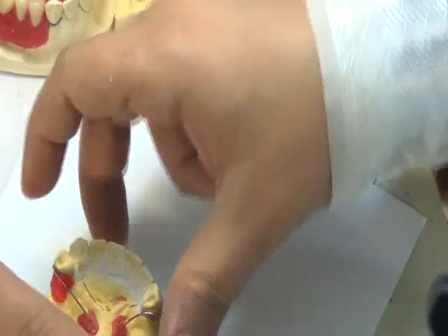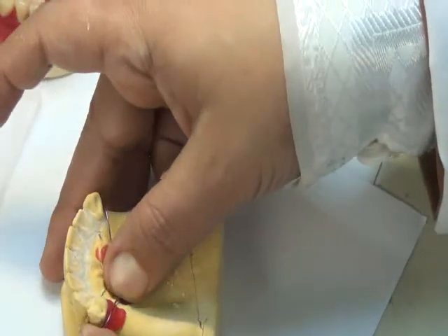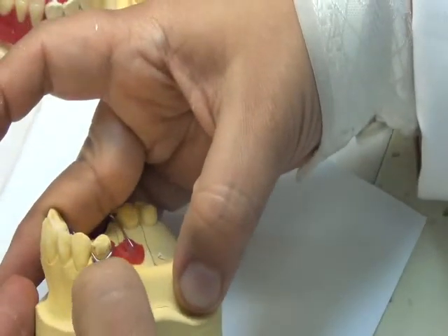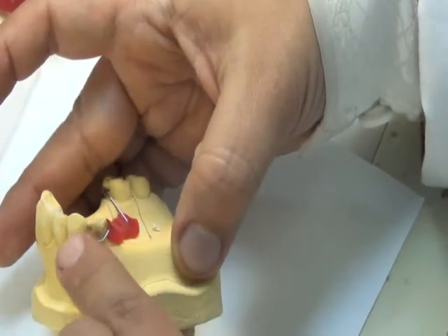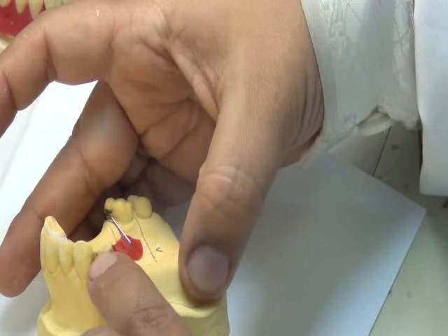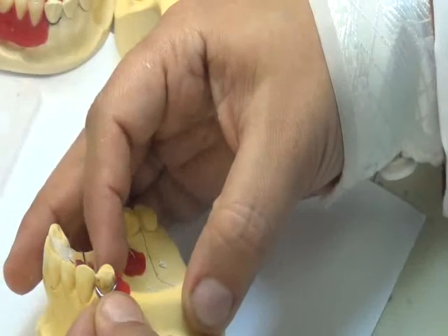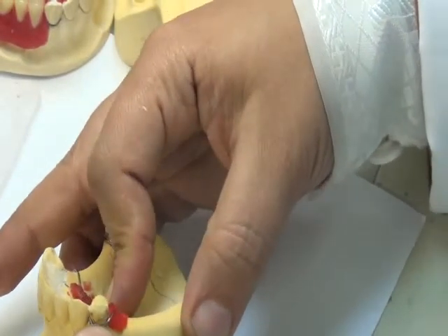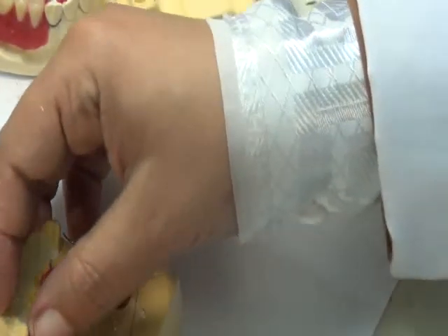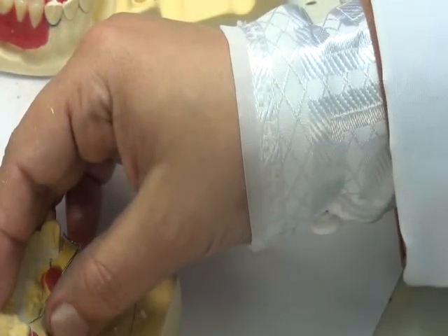Now, no matter what way I fix, anything that I add should keep the buccal surface clear. The buccal surface of the wire should at all times be clean and clear. So after I fix it in location, I'm making sure that the clasp is in the correct manner. It didn't go down and it's not going up away from the cervical line. It's still on the midline between the cervical line and the gingiva. And the tip of it is inside the embrasure, so I orient it in the way which I want it in the final RPD. Okay? And now you see that this wax is embedding it. And also I make this wax lower than the contact area because remember I'm going to set teeth now.